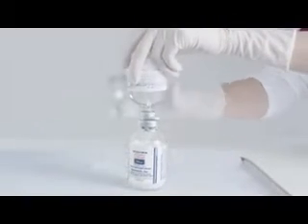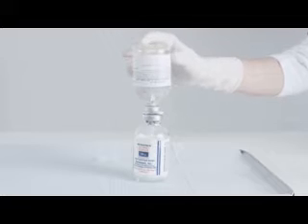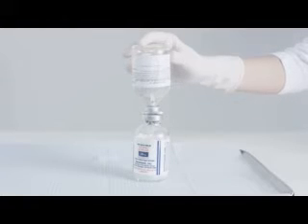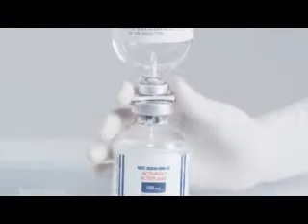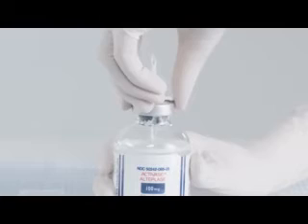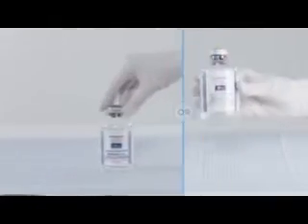Invert the two vials so the vial of Activase is on the bottom and the sterile water for injection is on top. Allow the entire contents of the sterile water for injection to flow down into the Activase vial. Remove the vial of sterile water for injection and the transfer device from the Activase vial. Safely discard the transfer device and the diluent vial.